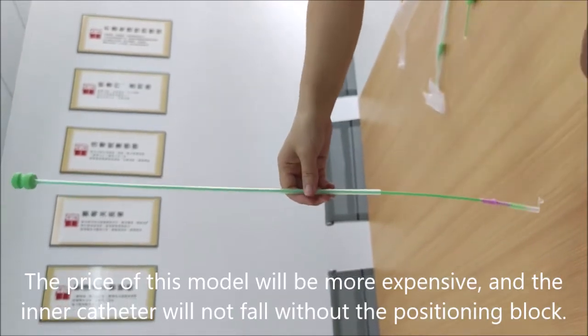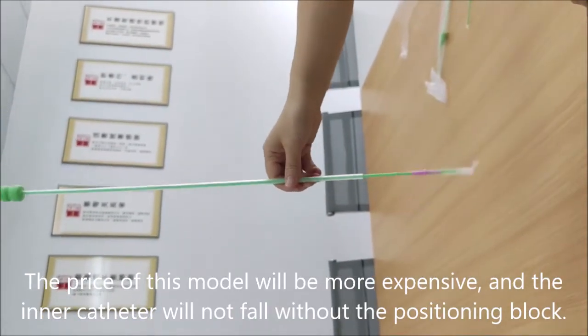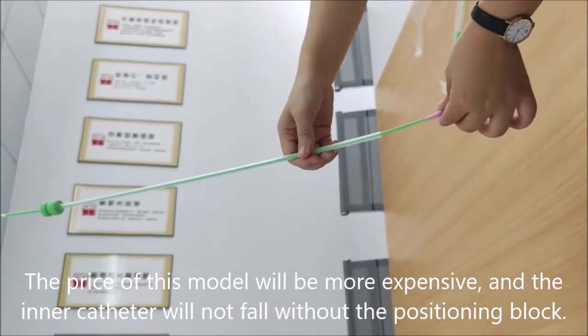The price of this model will be more expensive, and the inner catheter will not fall without the positioning block.